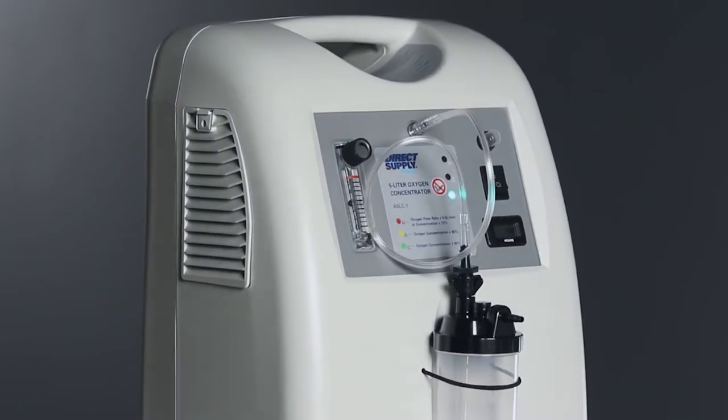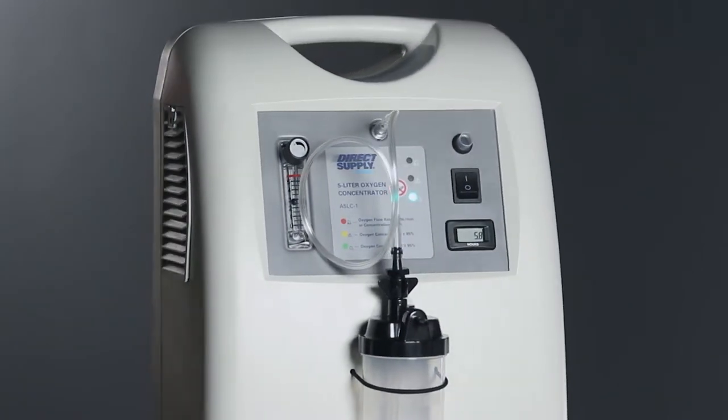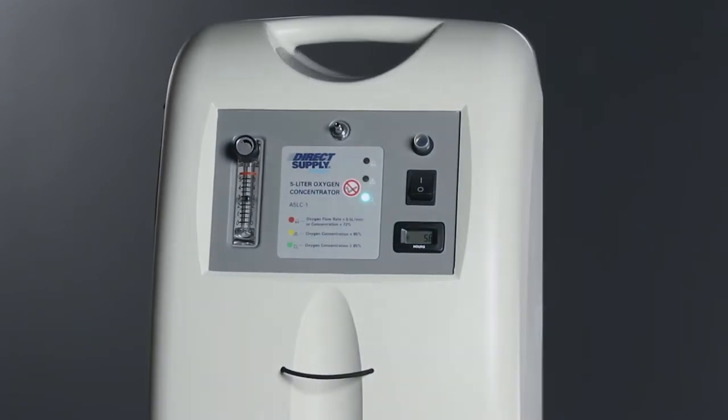The Attendant 5-Liter Oxygen Concentrator can be set up for use either with or without a humidifier bottle.